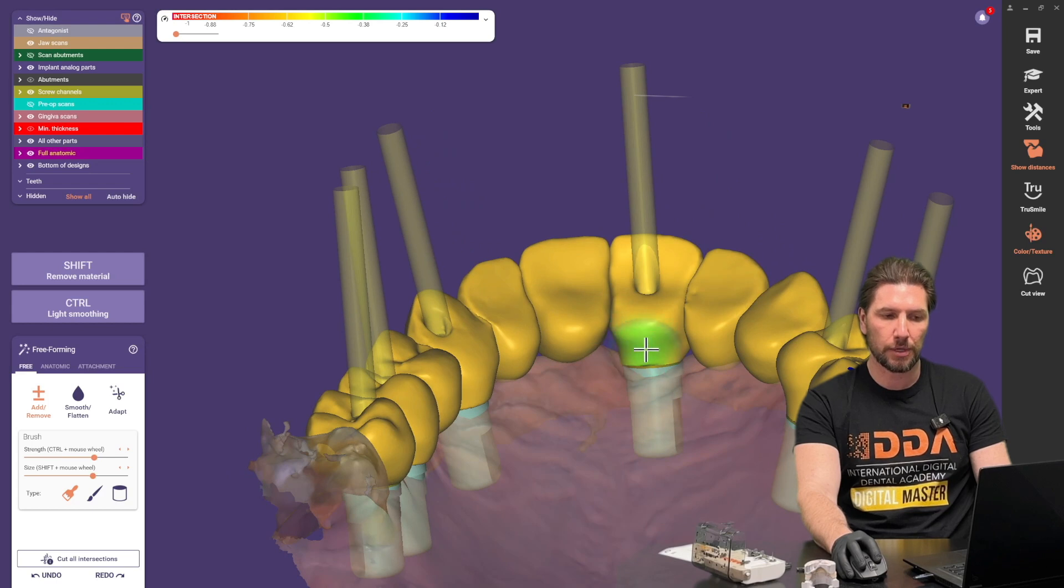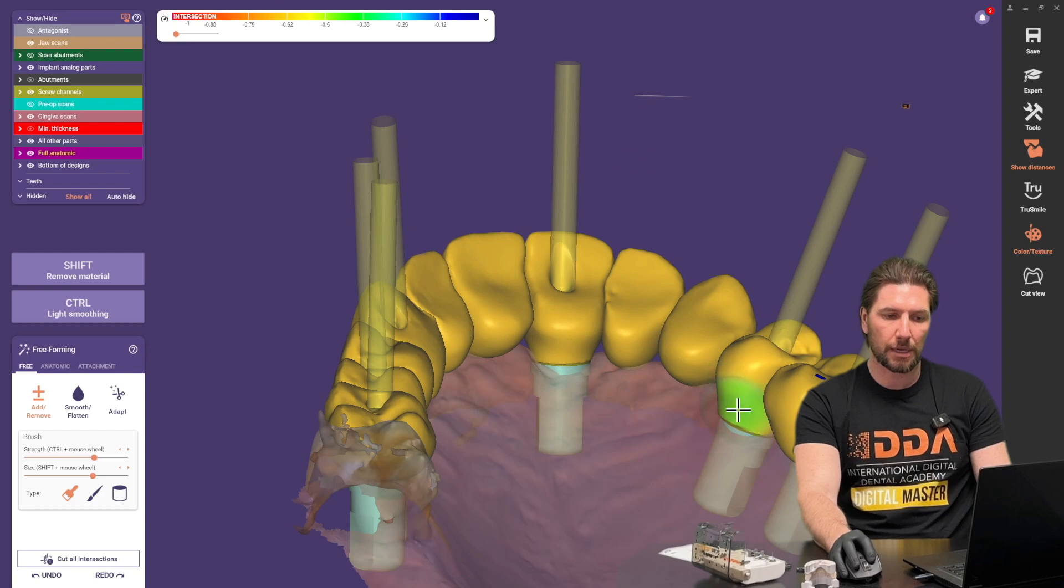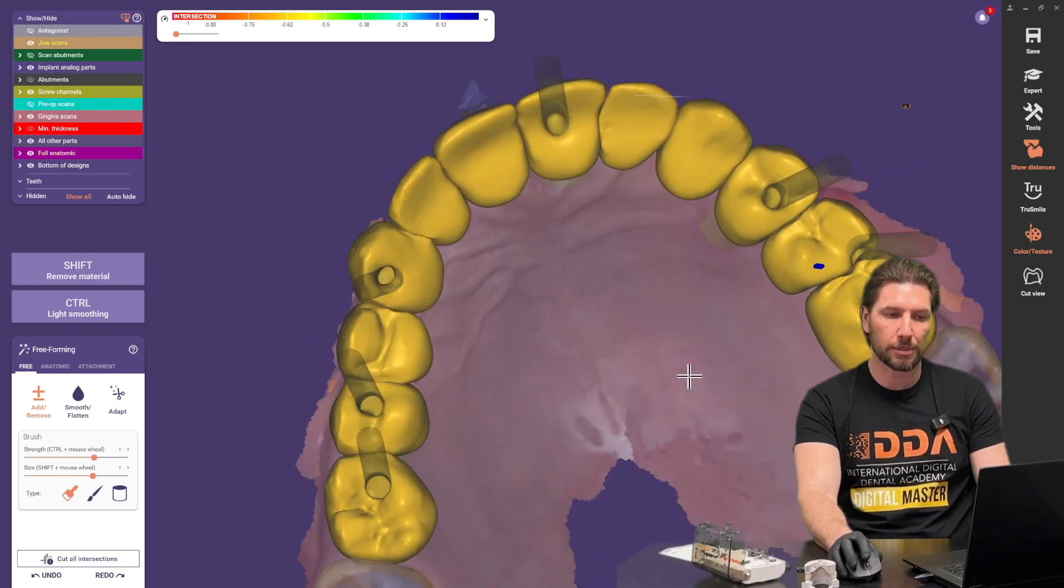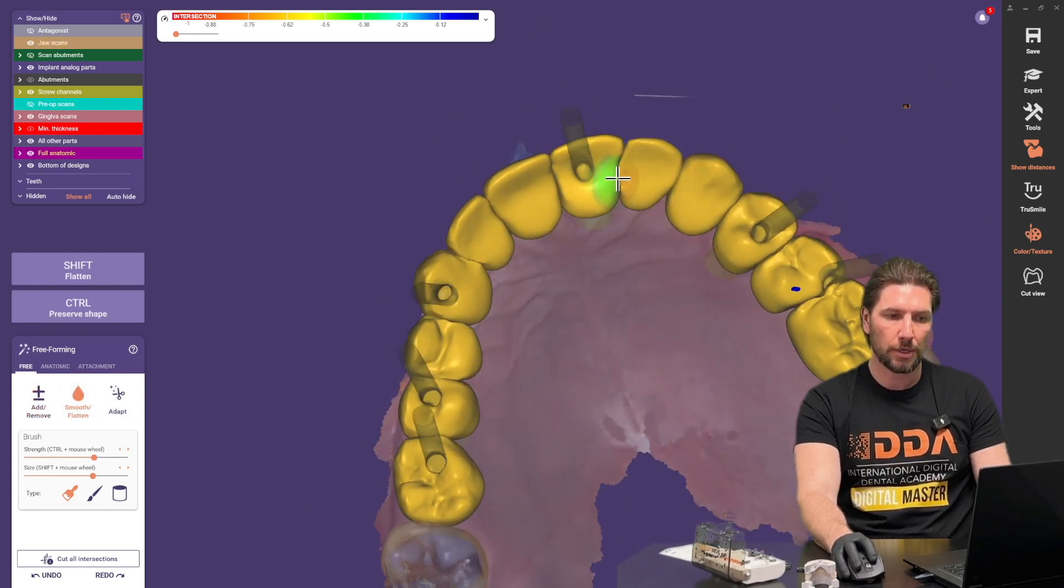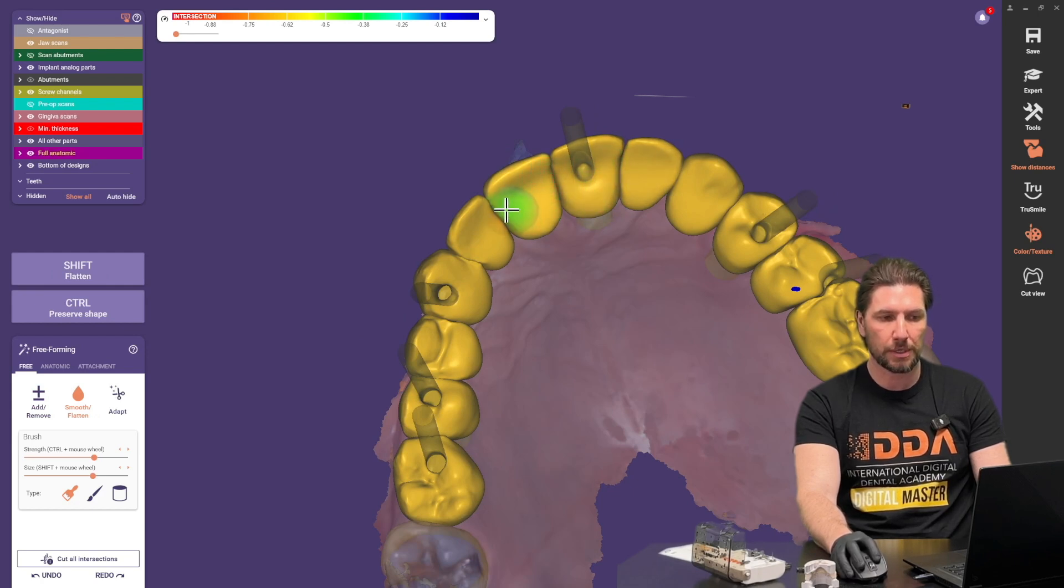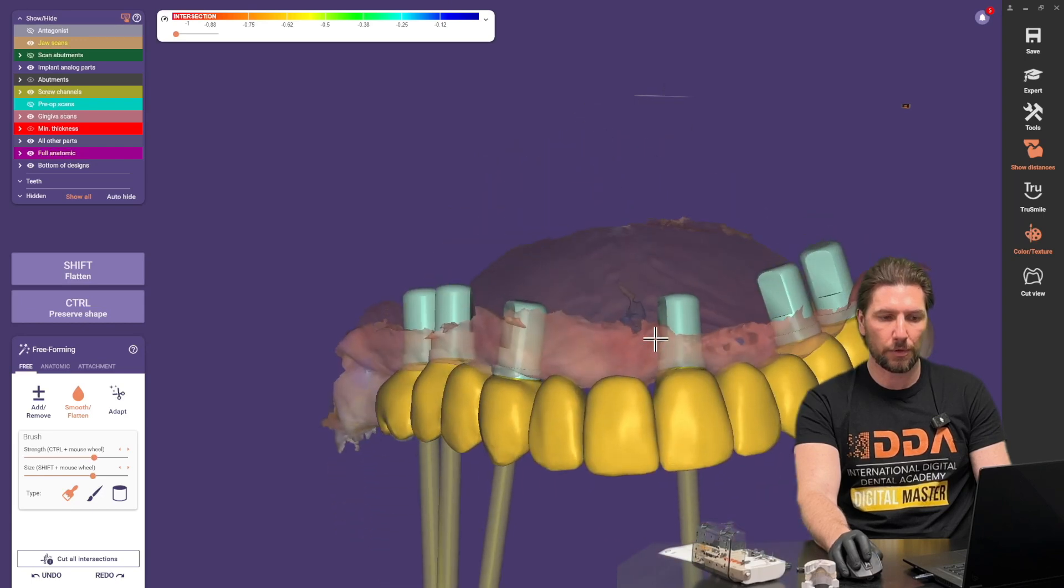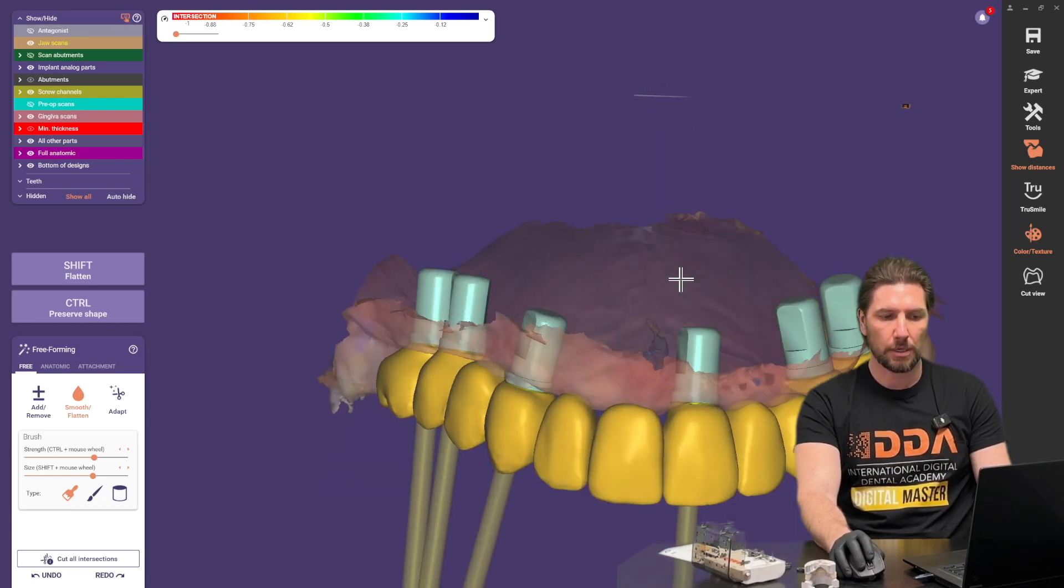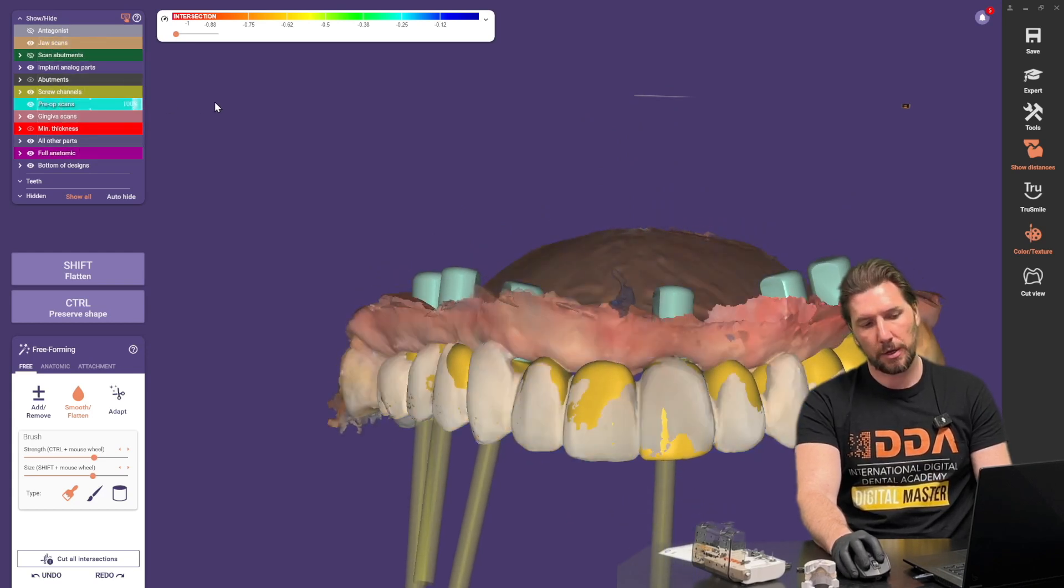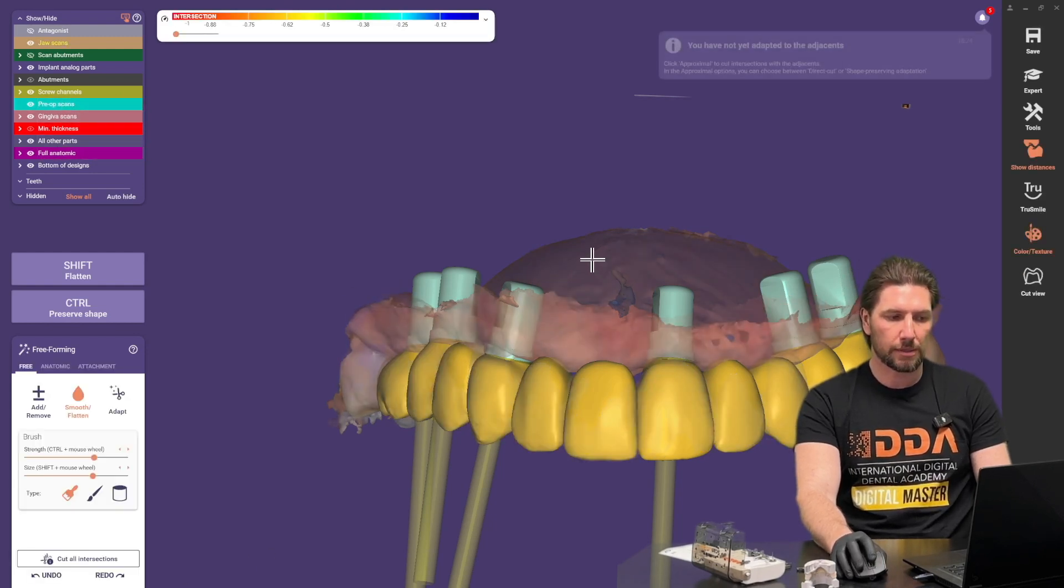Again like I said before this is just a provisional so for me if you wanted to have this same design later on and tweak if you'd spent a little bit more time in making this a little bit more aesthetic then obviously you could save that scene to make sure that that is something you can go back to but for this for my purpose of just same day all on X that I'm just going to design this for I'm not too bothered about what that looks like for the minor details obviously the incisor ledge everything is governed by if we go back to the pre-op of this pre-op that we've matched the shape to okay or close to.